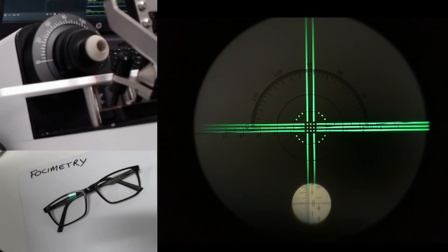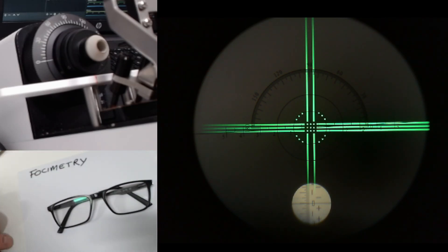Hello. We're going to take a minute to talk about focimetry. It's something that specifically our Year 1 and Year 2 students struggle with, but hopefully it will be of use to a lot of people.